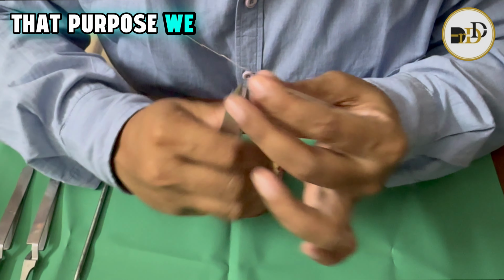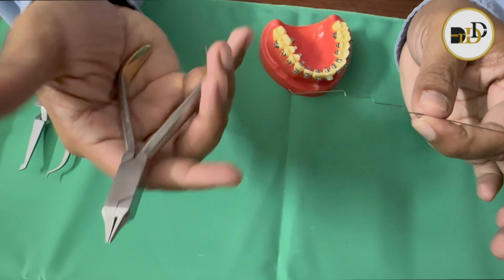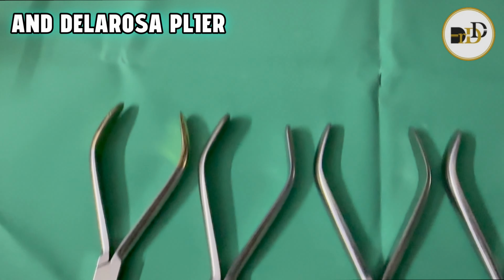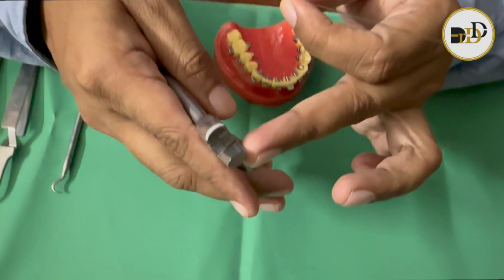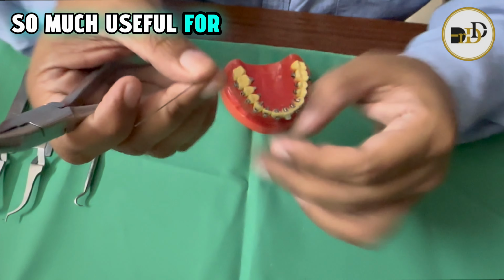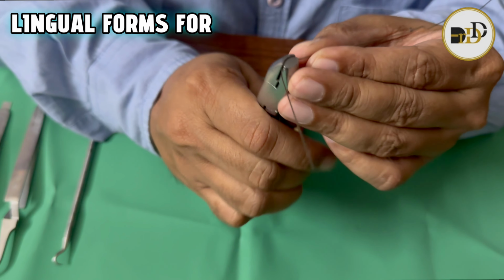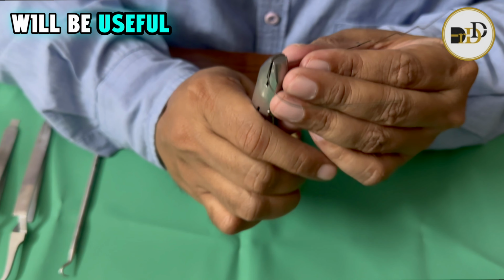And the De La Rosa plier without serration will be very useful for making the lingual forms.